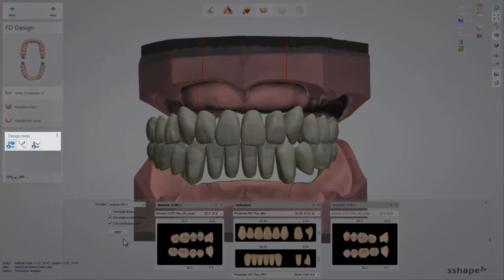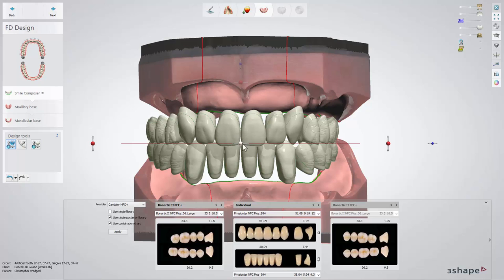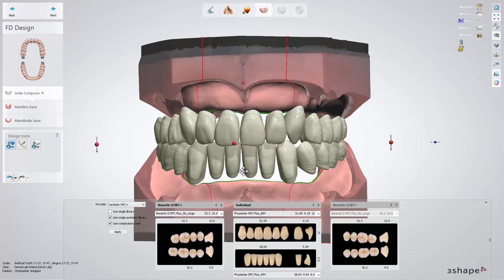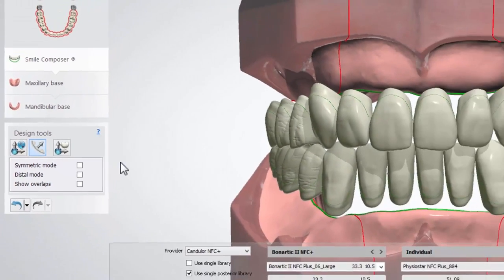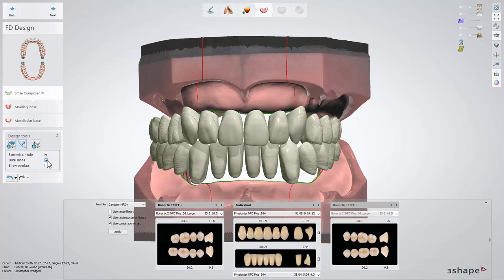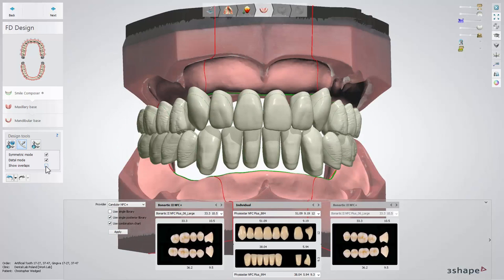At this point we also provide a few more tools which will help you with the design. The first is Occlusal Plane Adjustment — this tool is very helpful when working on custom-made teeth. It will let you move the teeth as if you were moving the occlusal plane. Our second tool is Arch Setup. Under this option you have Symmetric Mode, Distal Mode, and Show Overlaps. In Symmetric Mode, adjusting one tooth will reflect on the other one from the opposite side of the arch. You can switch to Distal Mode and move the whole group of posterior teeth all together.